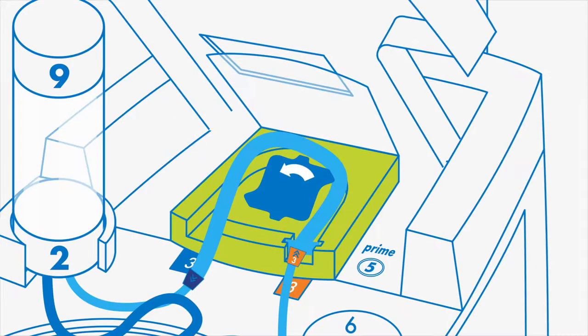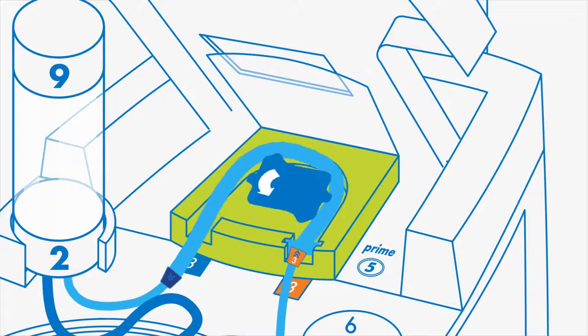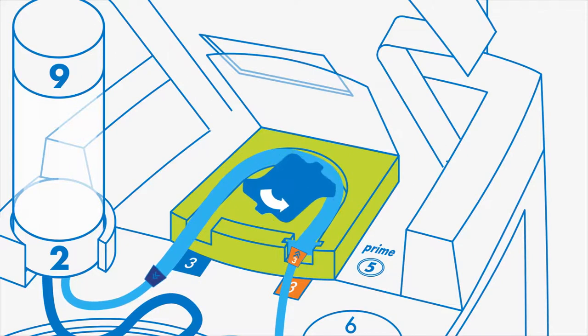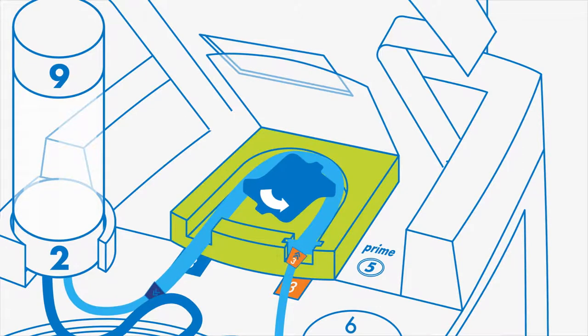Turn the blue pump knob very firmly counter-clockwise while feeding in the tube. Press the blue end of the tubing so it's fully in the groove.